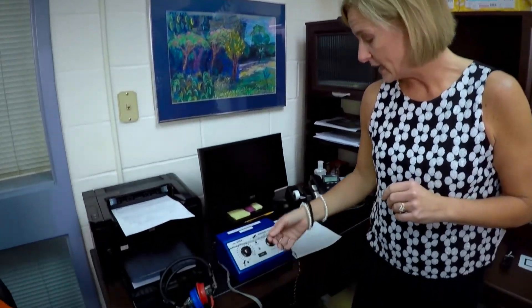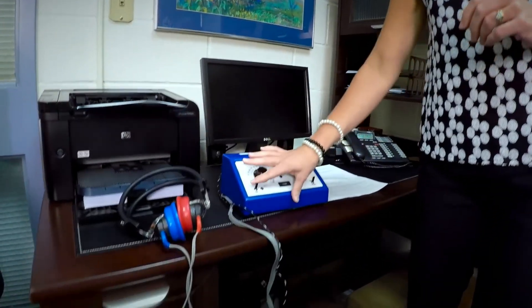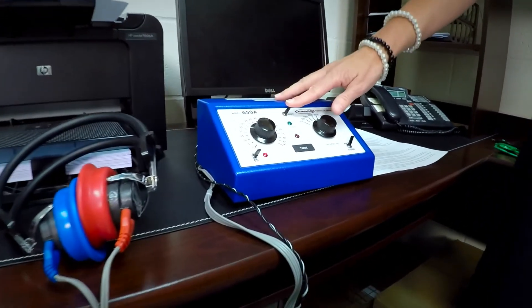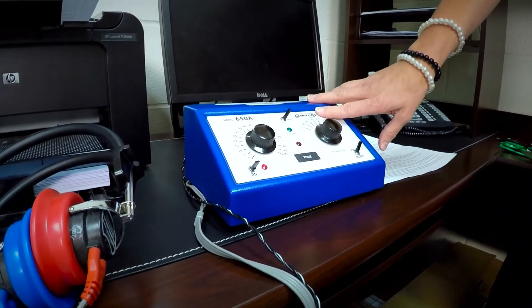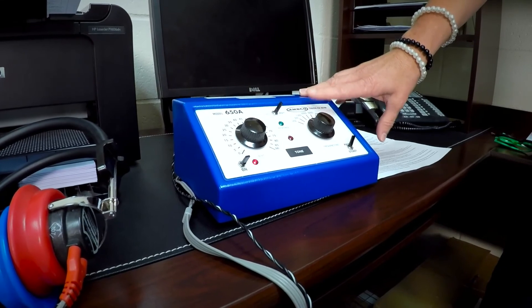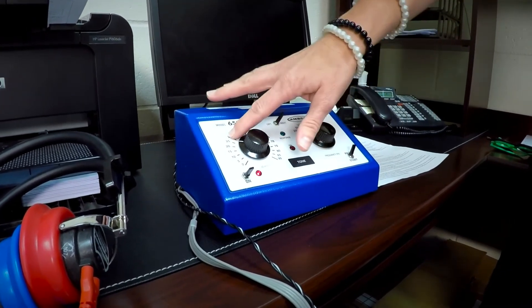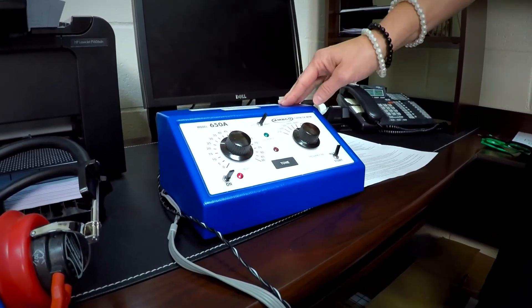First of all, you need to make sure your machine is plugged in and then turned on. You'll see that the dial is set to the right and we're going to be screening the frequencies of 1000, 2000, and 4000 at 25 dB, so the dial should be set there.